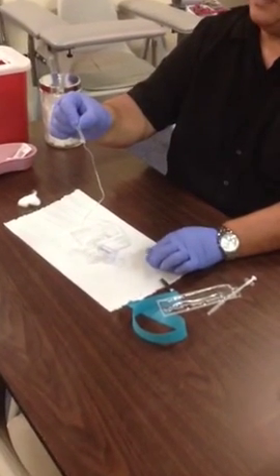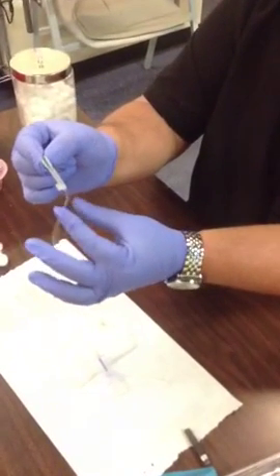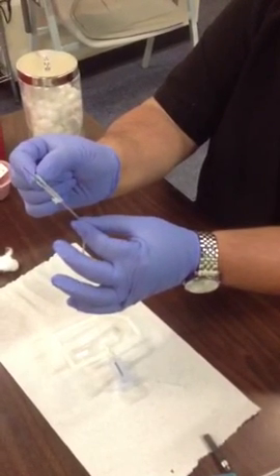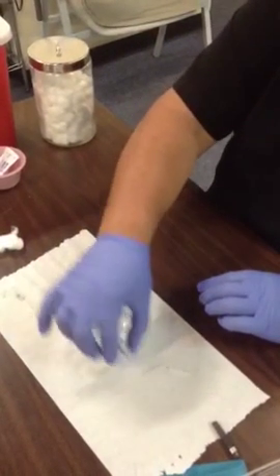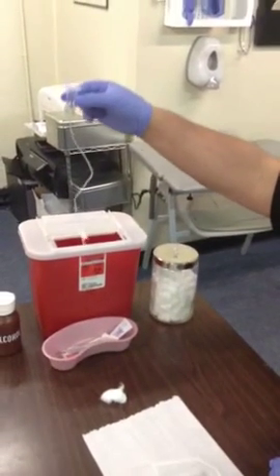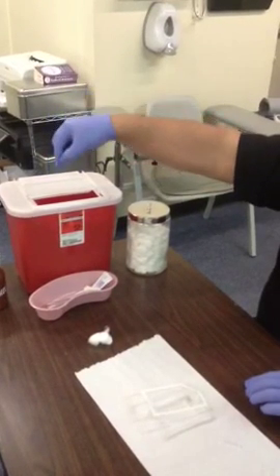Butterfly needles are never recapped — they have safety devices. If you pull on the tubing while grabbing the wings, it actually pulls the needle down into the tail and safely hides it. When you're ready to dispose of these, grab the adapter, direct the needle into the sharps, and then drop the adapter behind it without your fingers actually going into the mouth of the sharps container.